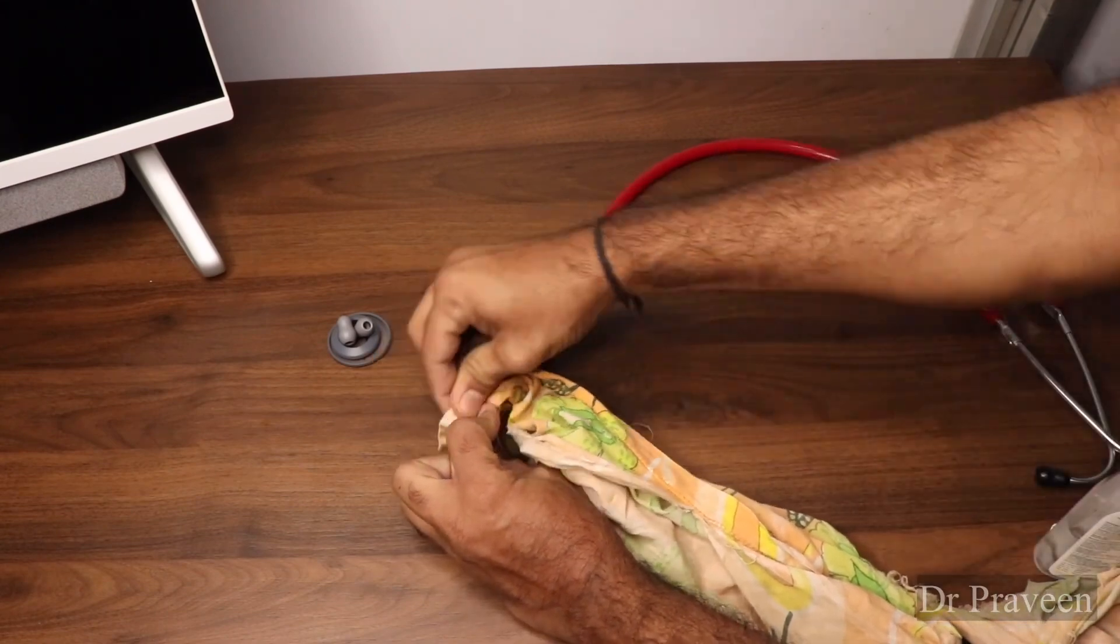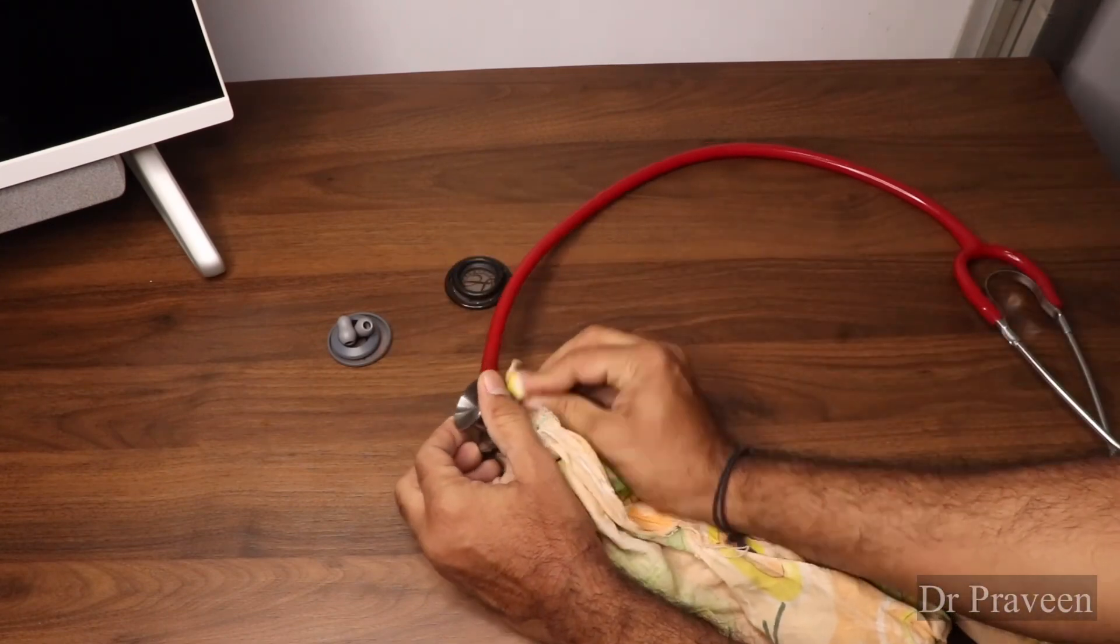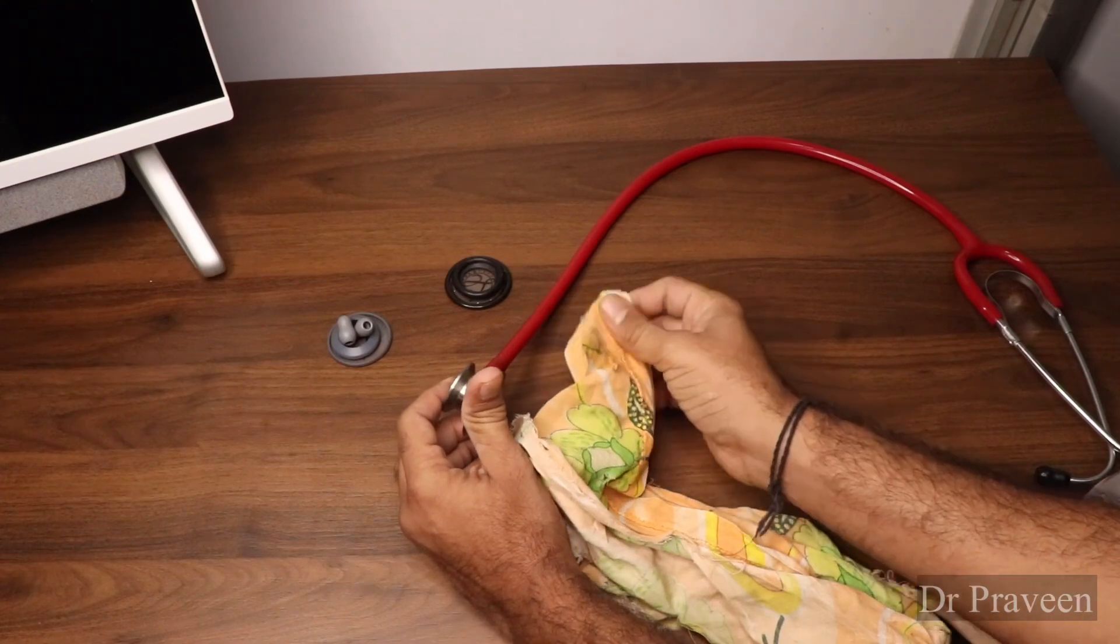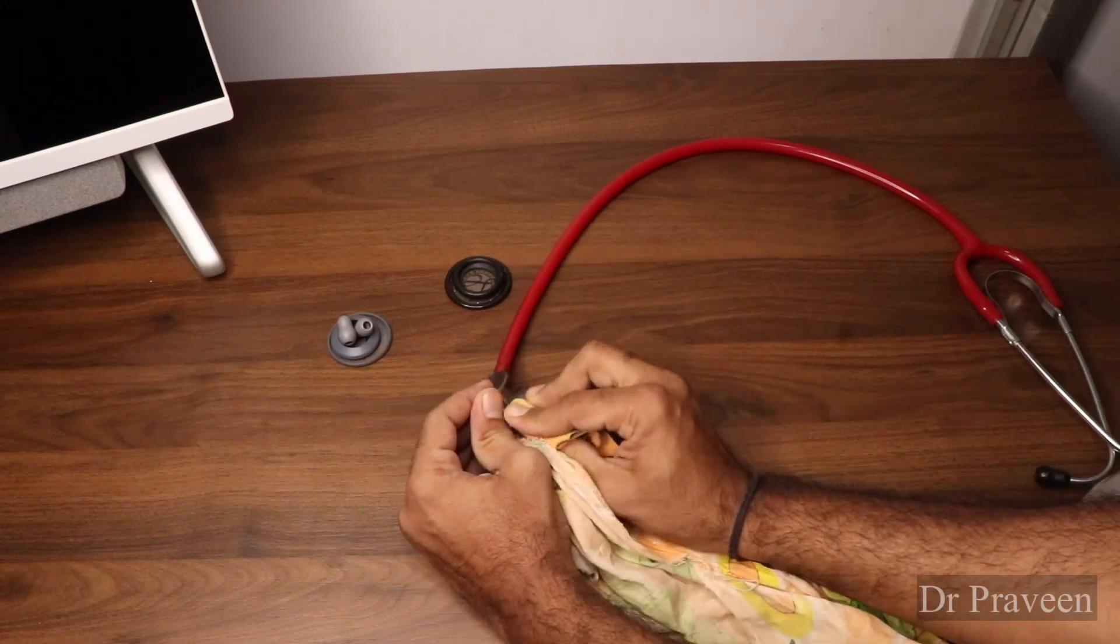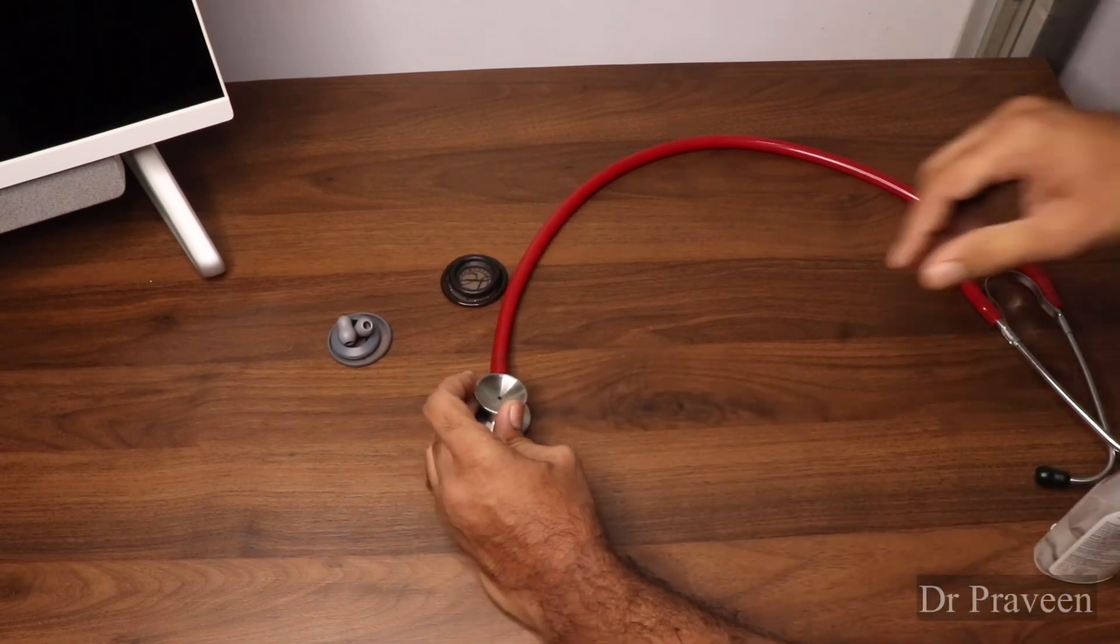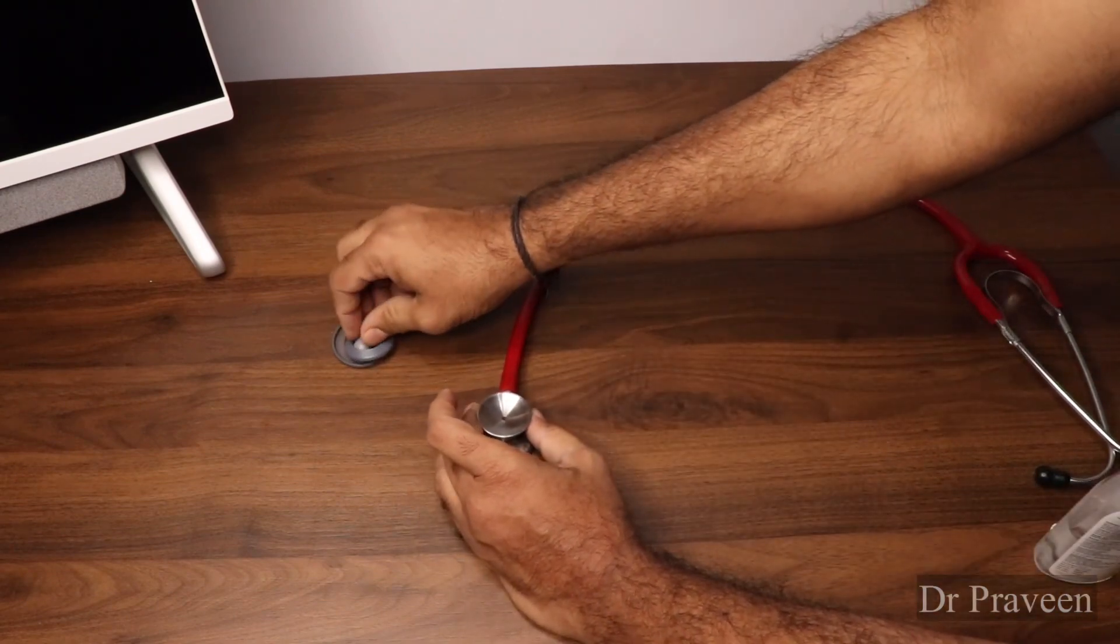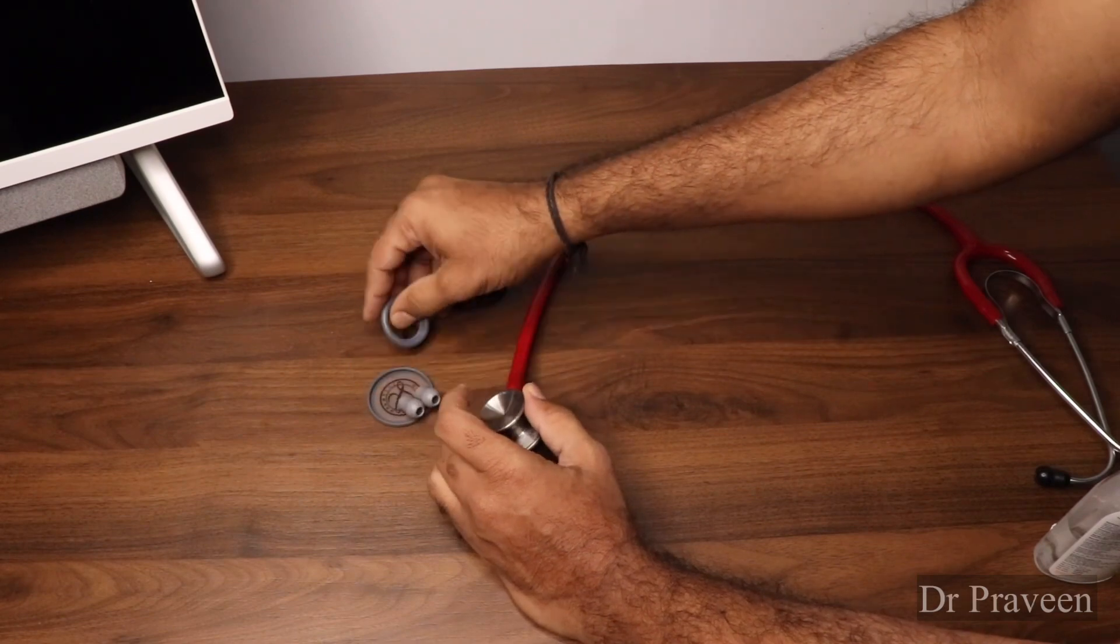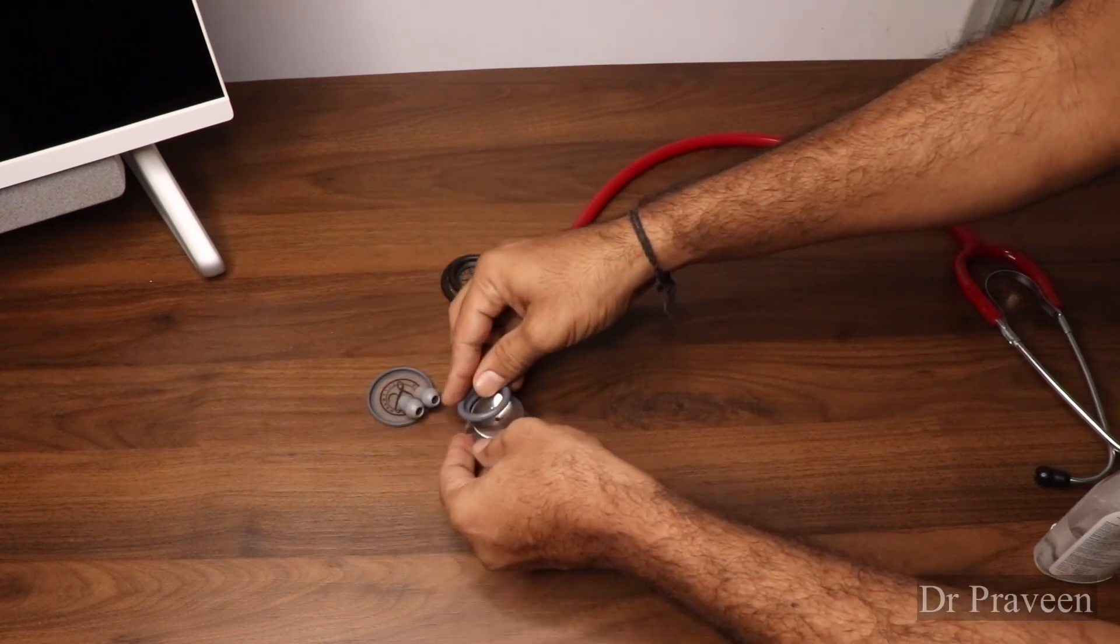You need to order the diaphragm based on your model only. We'll try to replace this one first.